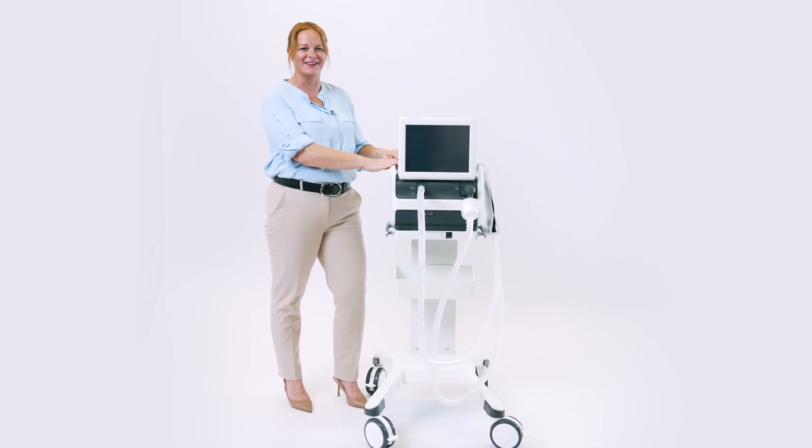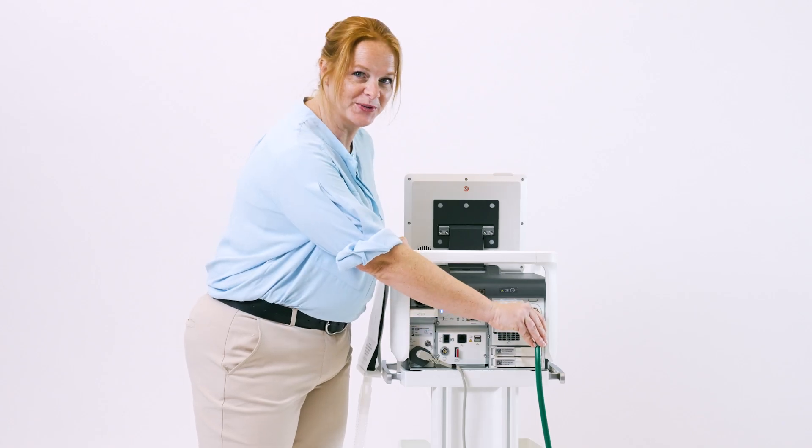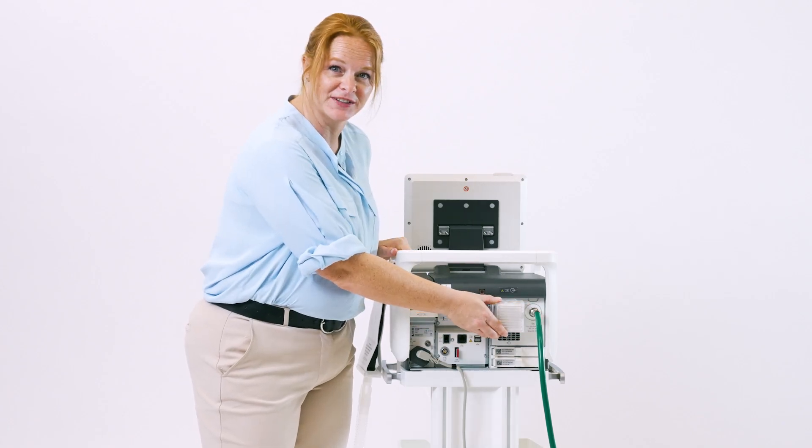Now let's start with the back of the ventilator. Plug in your power cord and your O2 hose. Make sure your air inlet filter is connected.